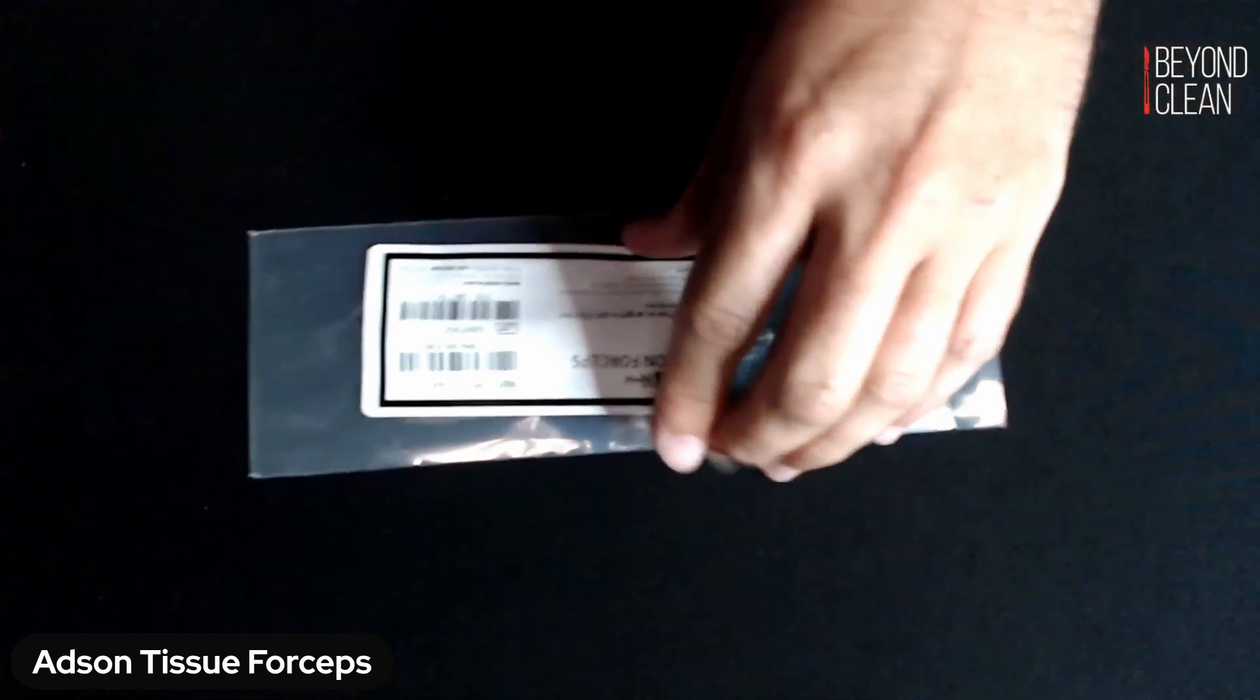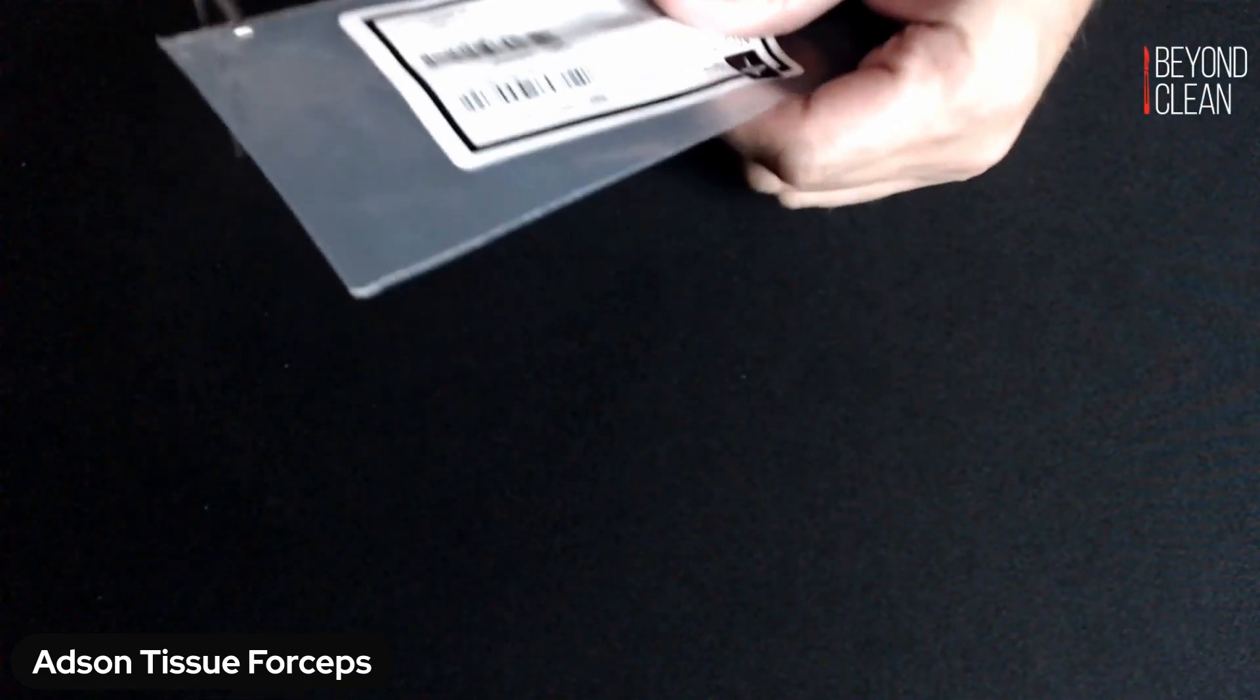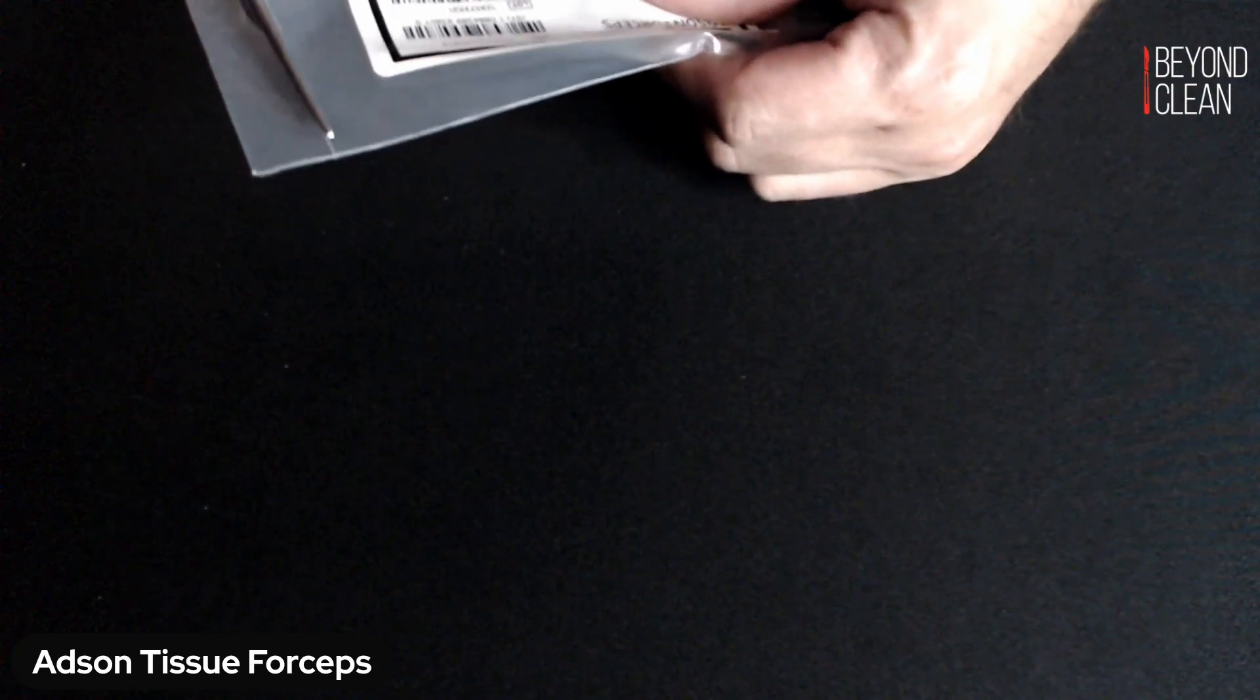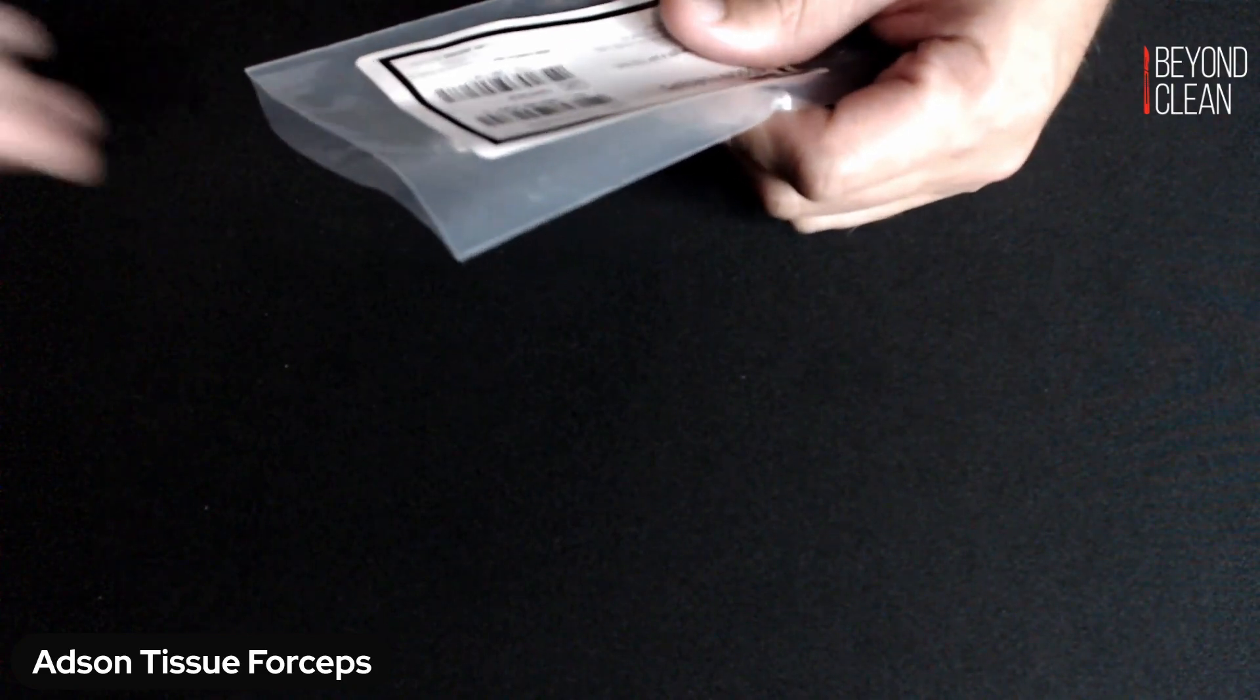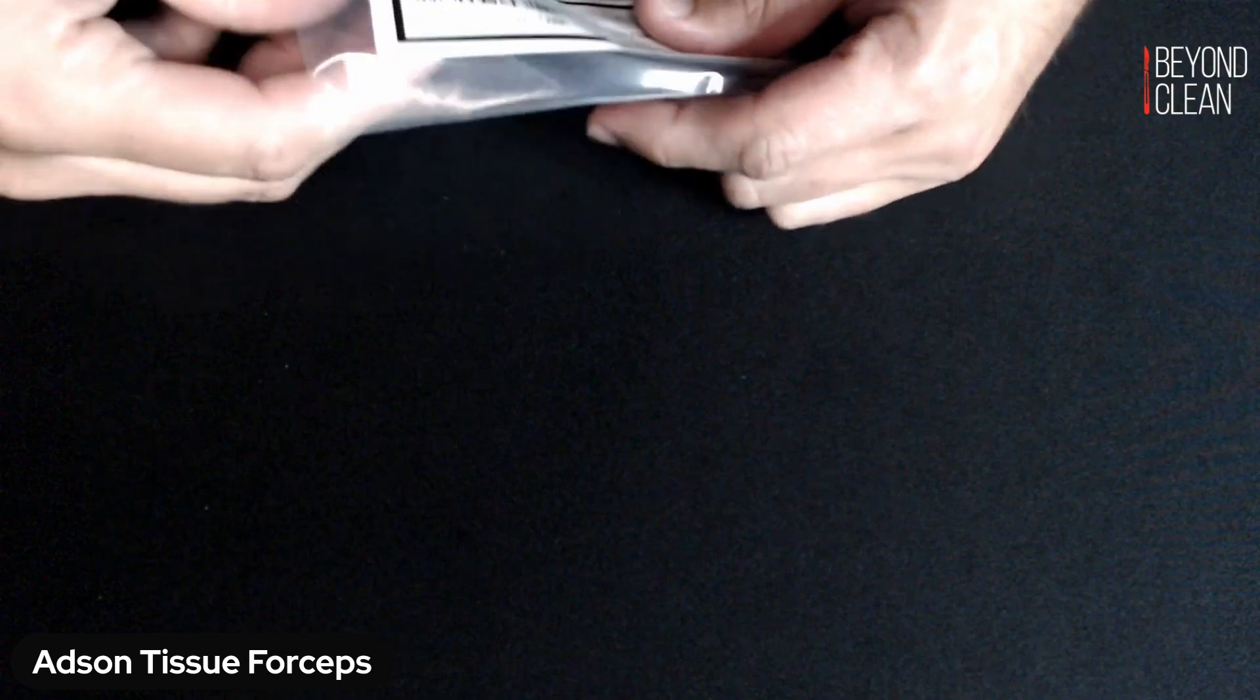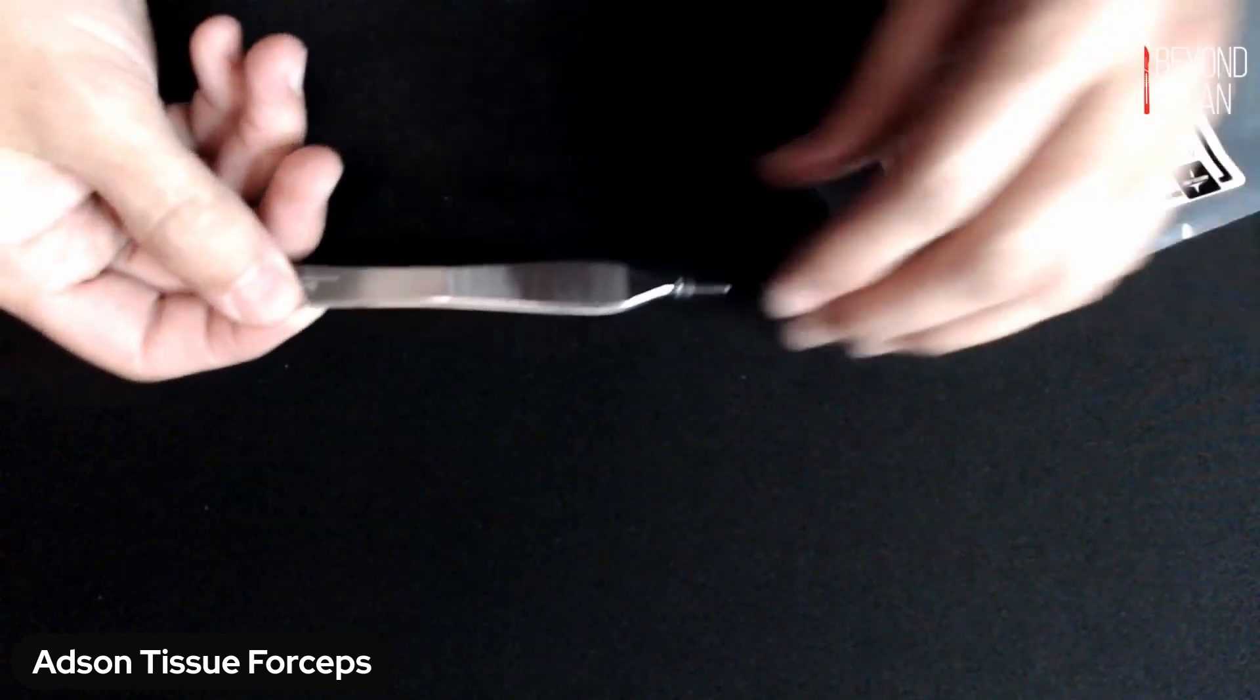So if you're going to buy some extra instruments, your Adson Forceps are a great one to stockpile in particular facilities. That's not a challenge in all facilities, but I know it's very common out there.